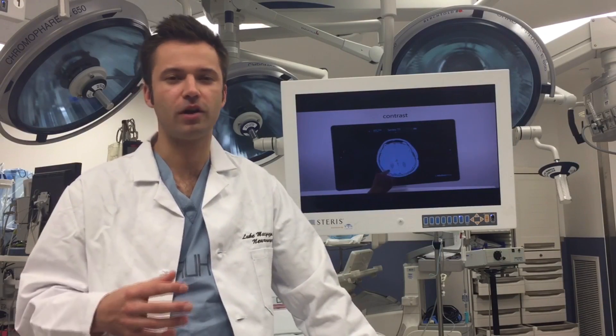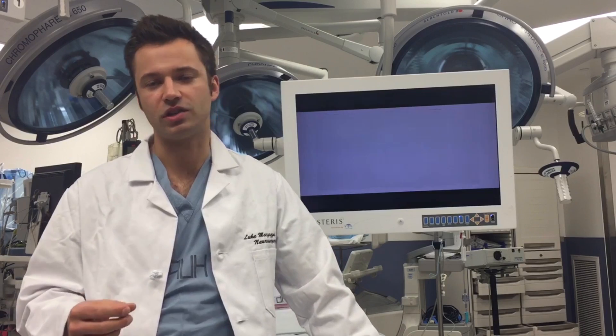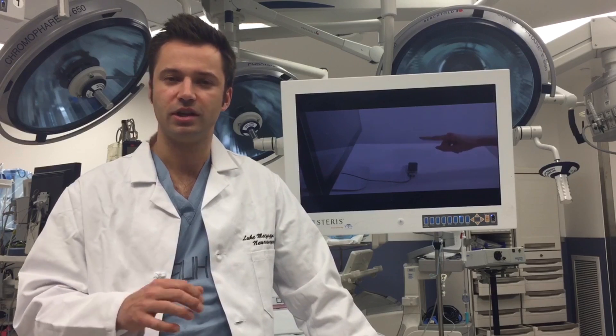Motion sensing technology has existed for a while, but so far it has not changed how we interact with medical images in a sterile environment. MotionView has been designed to fulfill this need. In a highly specialized medical environment, it allows physicians for the first time to efficiently and elegantly interact with medical images in a touch-free interface.